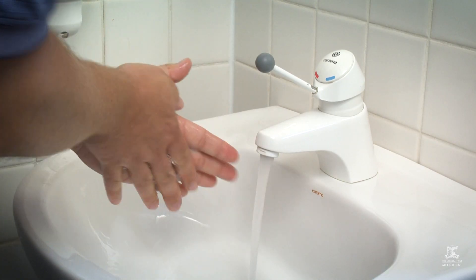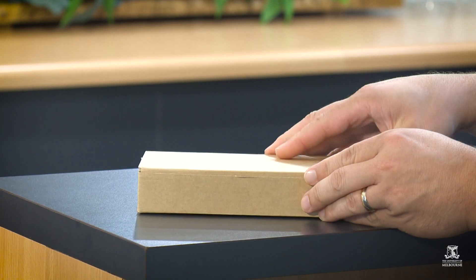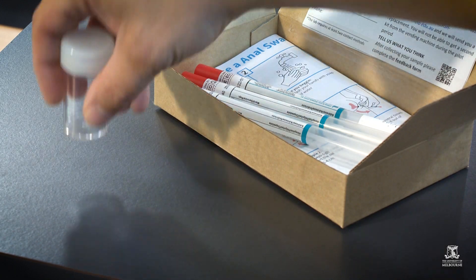Start by washing your hands with soap and water. Dry your hands on a clean towel. Open the contents of the kit on a clean surface.